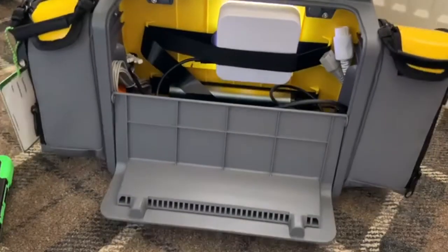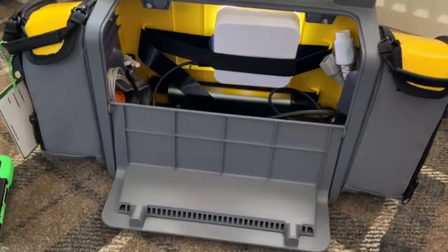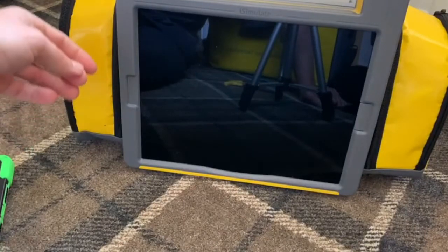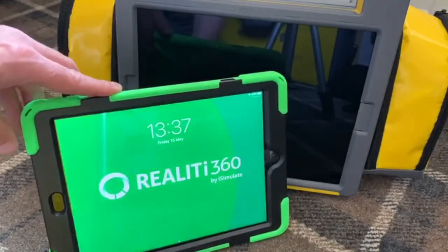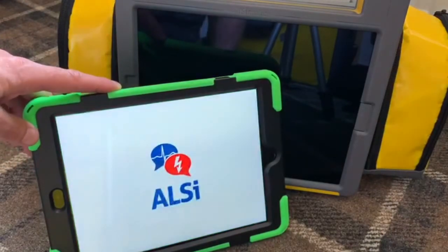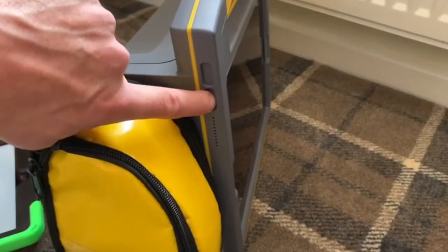Round at the back, we've plugged our Wi-Fi in. We've got the lead in and we've got our nice beam telling me that it's all switched on, and the word 'Amplify' is on there telling me we're all plugged in. I'll shut up shop, spin her around. We are going to introduce the green iPad — that's the controller 10.2. Check on at the side, no problem. Looks fine — still got a home button on the 10.2, unlike the Pro.